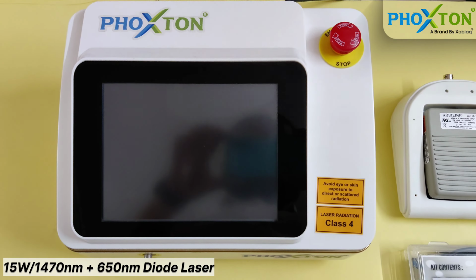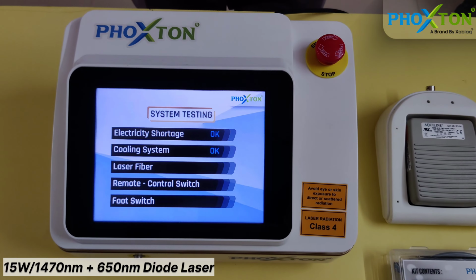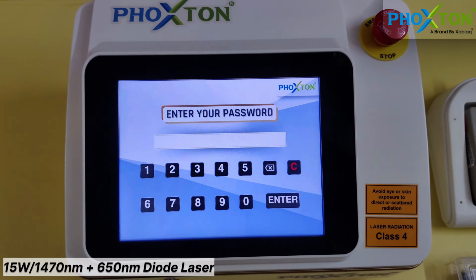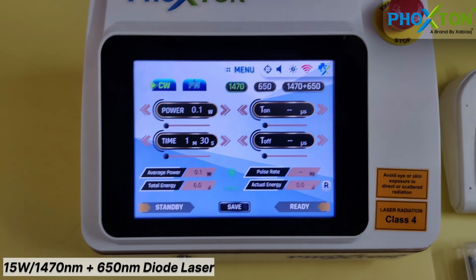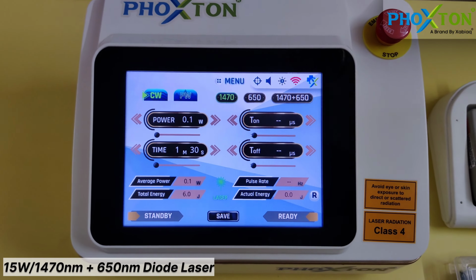Now we will start our machine. This is the main screen. After that there are some security checks and the machine will start. You can see here we have to insert a password. You will enter it and you will see this is the main user interface, or the main screen.